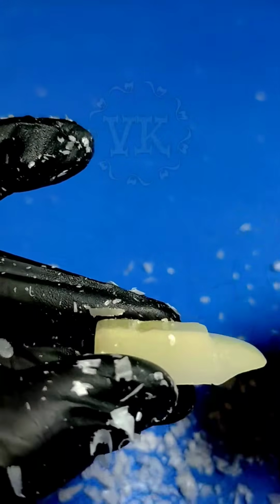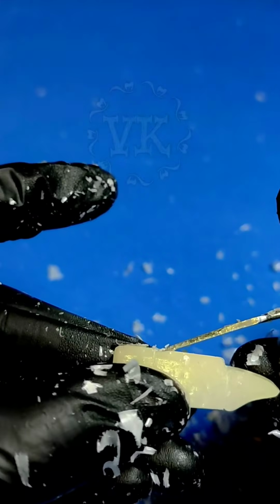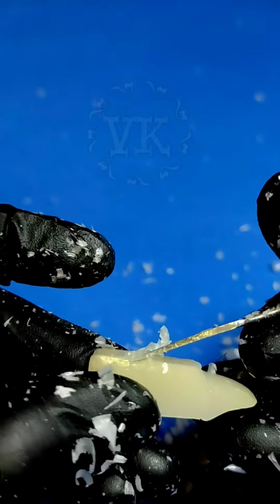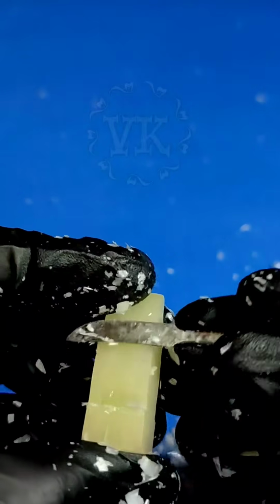Please notice when I'm making this groove, the carver is contacting only on the tip. Should not keep it like this. If you keep it at an angle, the cutting efficiency is more. If you keep it more parallel, the cutting efficiency of the end of the carver becomes a bit lesser.